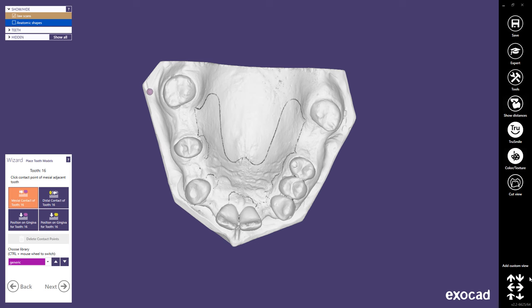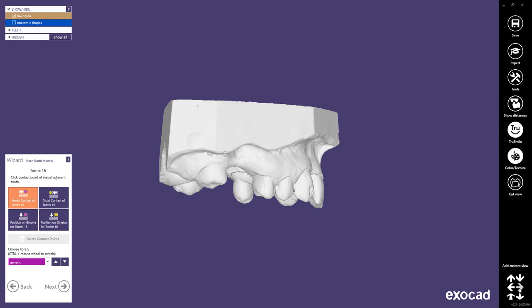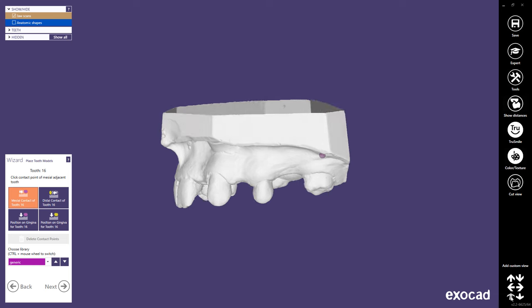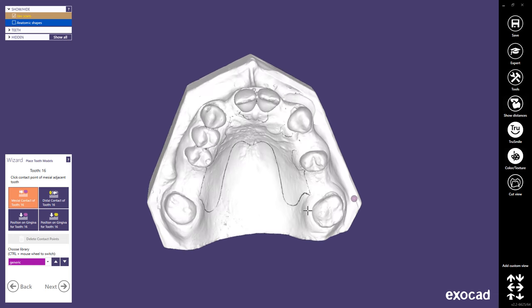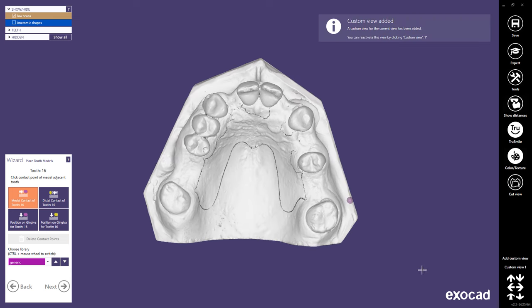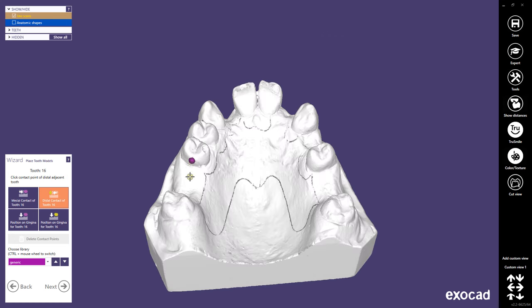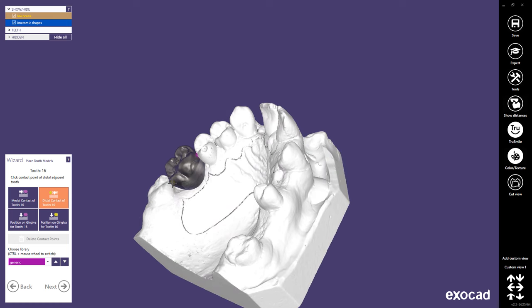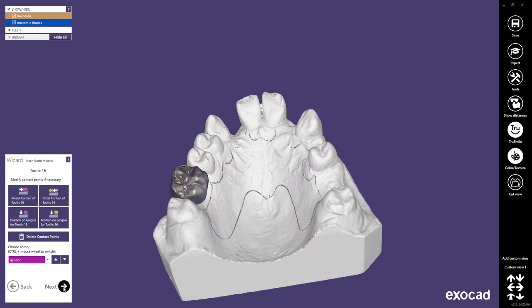There are 6 preset views. The box on the left side of the screen is a step-by-step guide called the Wizard. The title of the current step is at the top of the box with the instructions just below. In the current step, Place Tooth Models, click the mesial contact point of tooth number 16, then click the distal contact point. Hit the Next button in the wizard menu.